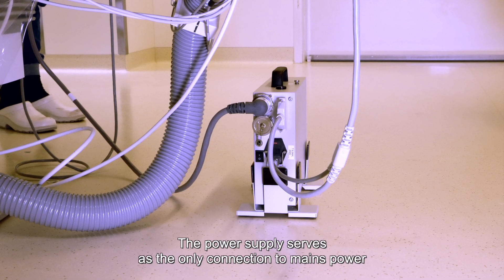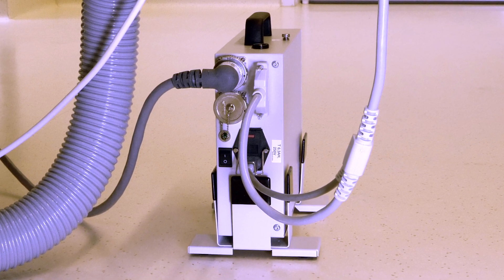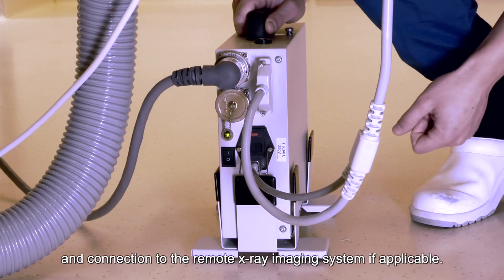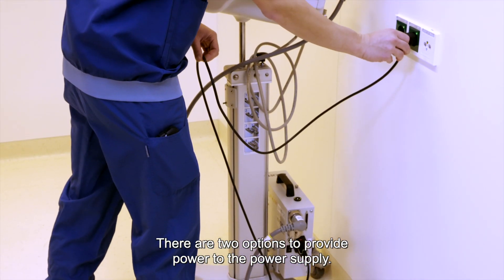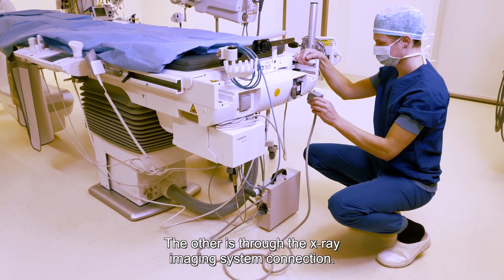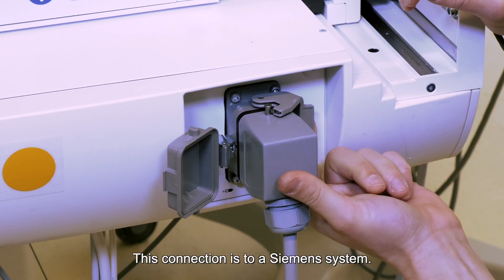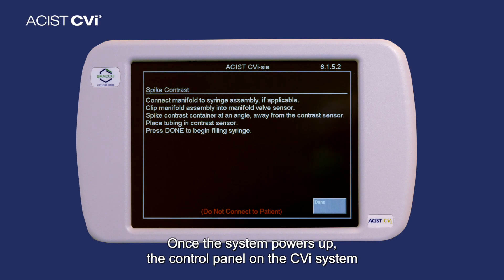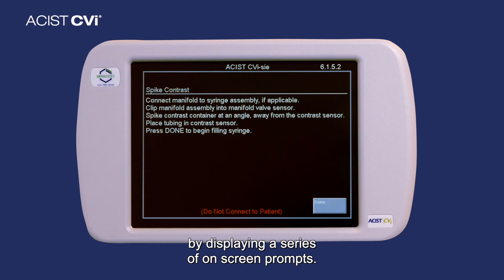The power supply serves as the only connection to mains power and provides power to all subsystems of the CVI system. The power supply also provides the data interface connections between subsystems and connections to the remote X-ray imaging system, if applicable. There are two options to provide power to the power supply: one option is through the socket, and the other is through the X-ray imaging system connection. If connected to the X-ray imaging system, the CVI will get its power from there. This connection is to a Siemens system; other connections may vary. Once the system powers up, the control panel on the CVI system will provide guidance during the setup procedure by displaying a series of on-screen prompts.